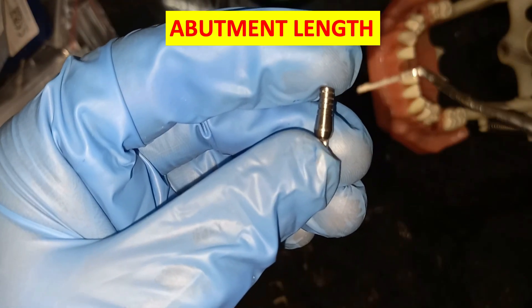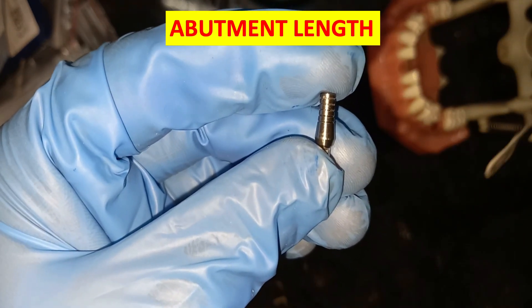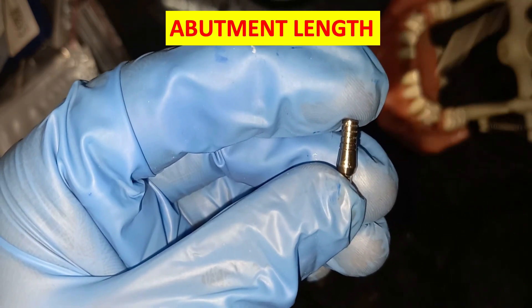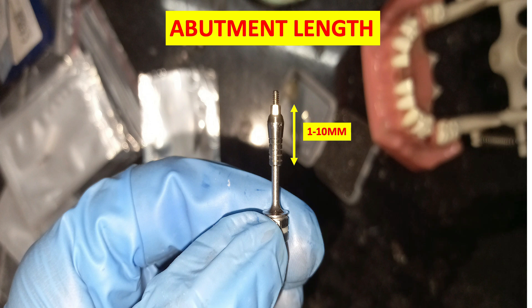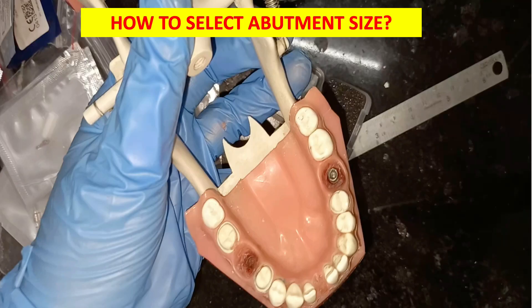What is abutment length? The length should range from 1 to 10 mm. I'll tell you how to select the abutment length and type. The length should be somewhere between 1 to 10 mm, not more than 10 mm. All these readings are according to the book of implantology by Karl Misch.